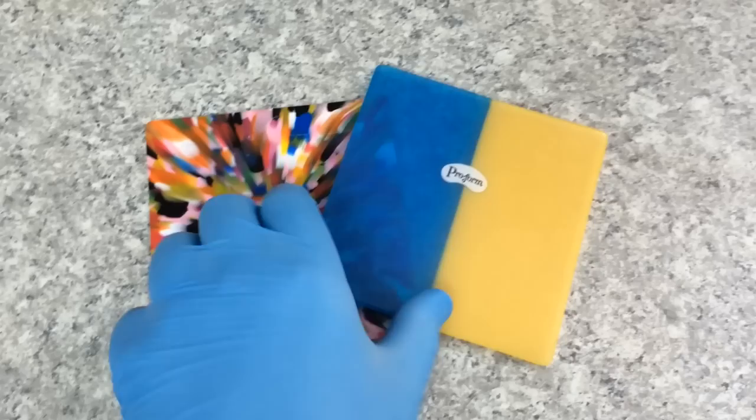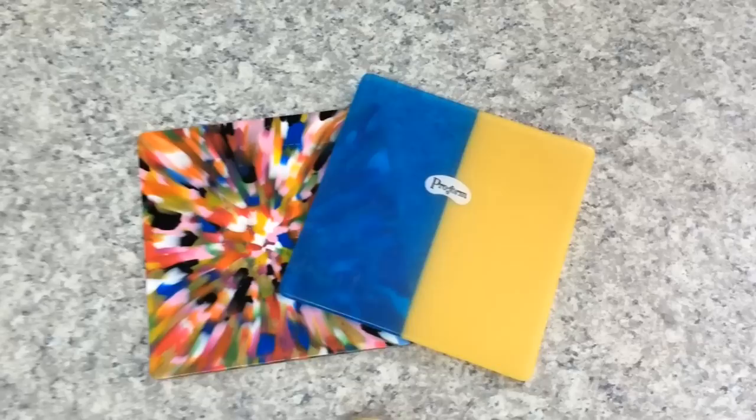A lot of them come in square sheets like this. The ones that we use are round but we choose the color that the child wants and then we go on to making it.